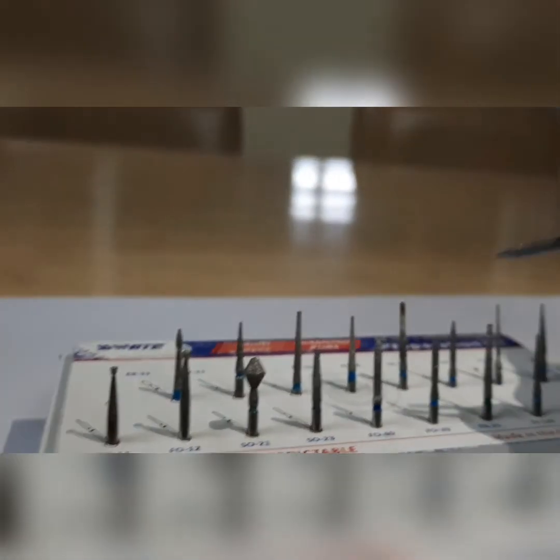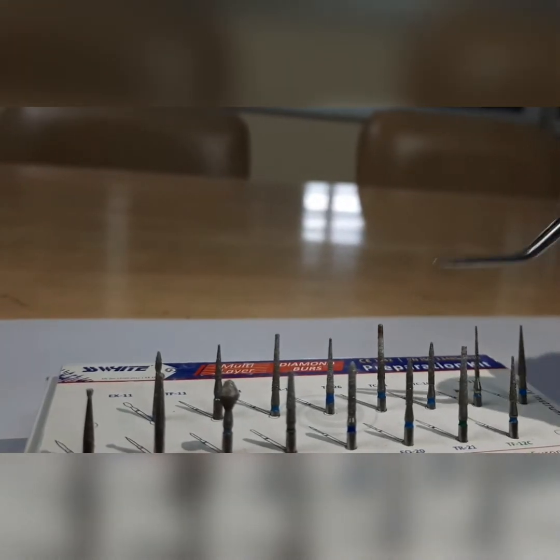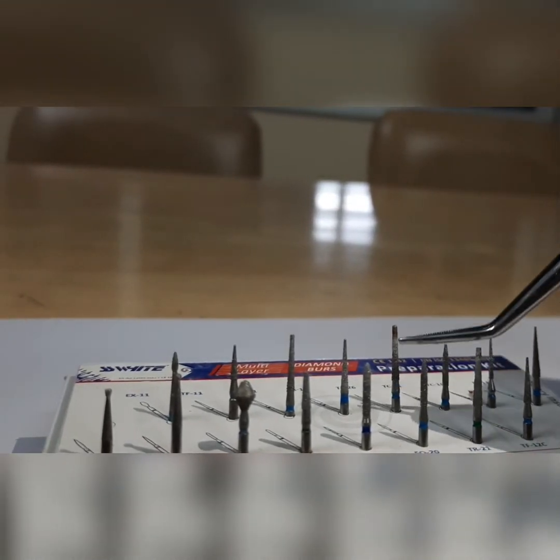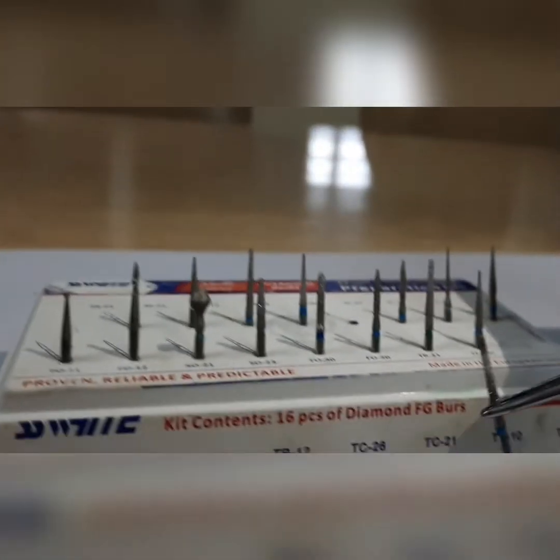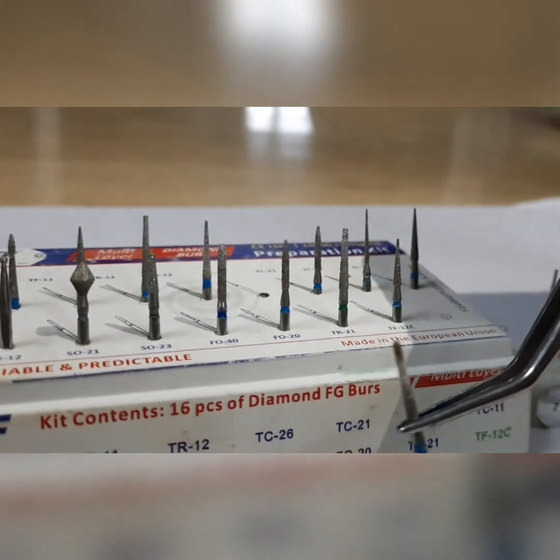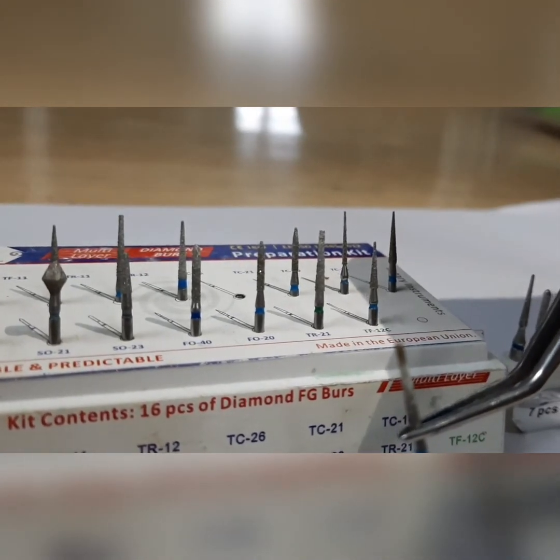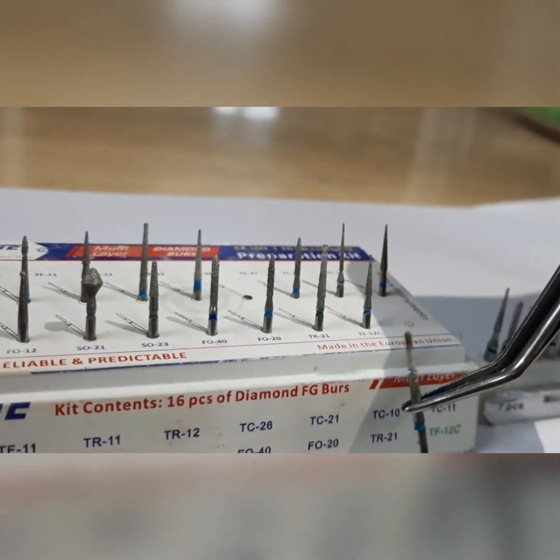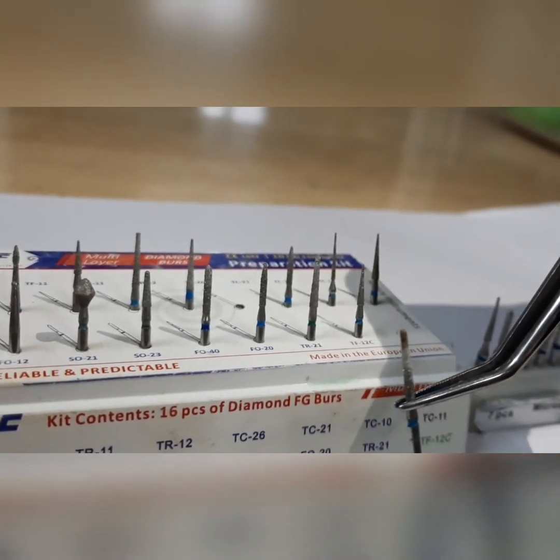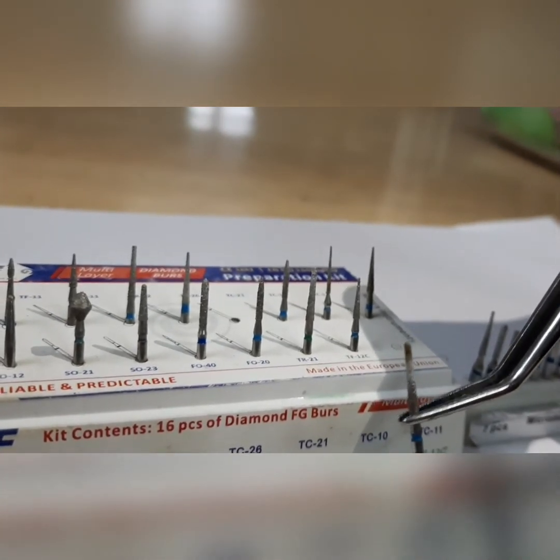As mentioned, you have the chamfer burr and the flat-ended diamond. One more important burr is the round-ended tapered fissure burr, which is round at the tip. This can be used for general preparation on the labial aspect, on the lingual side, and on the cervical one-third, so that we can do a proper reduction.